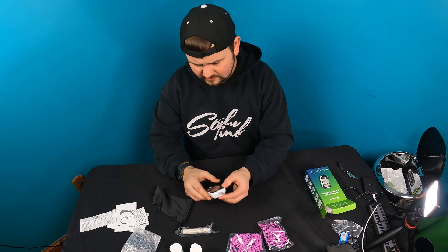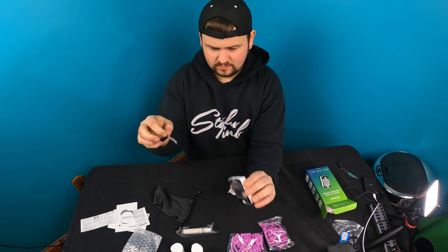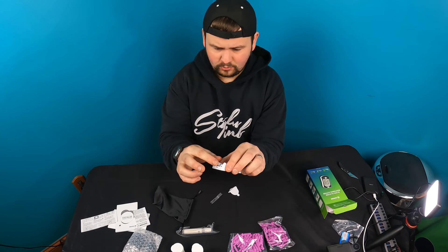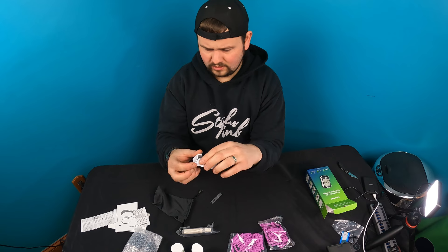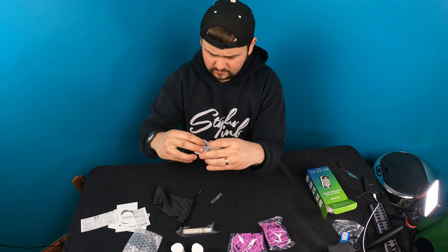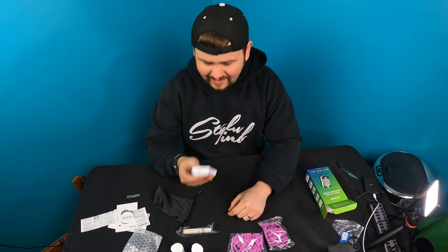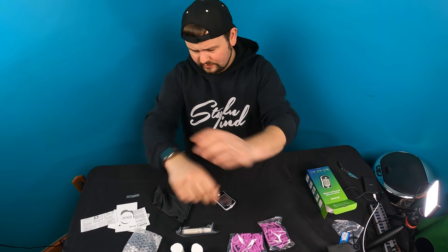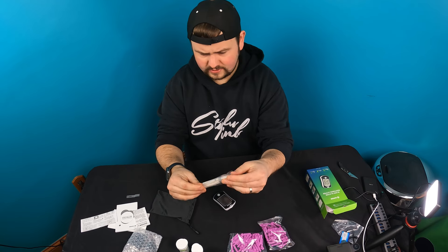Here's the unit itself. You pull it out and slide the battery into place. Put the battery cap back on — you want to have it off when you insert the battery. Let's go ahead and show you the actual device.